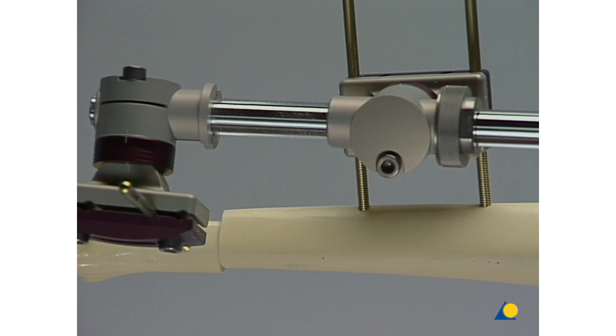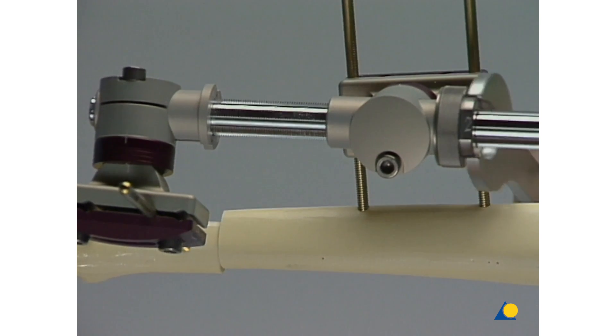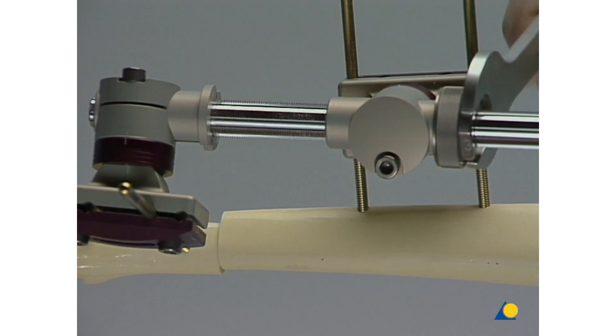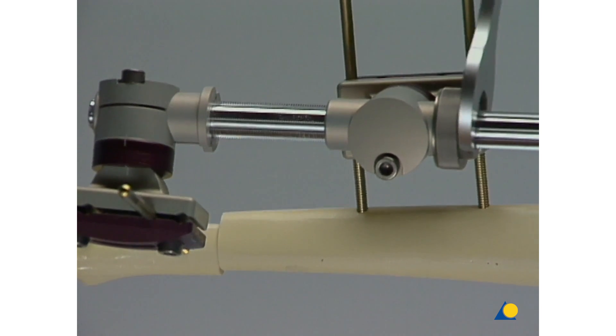For the final compression, or in cases where larger forces are required, the nut on the segment transport sleeve can be turned with a special hexagonal wrench.